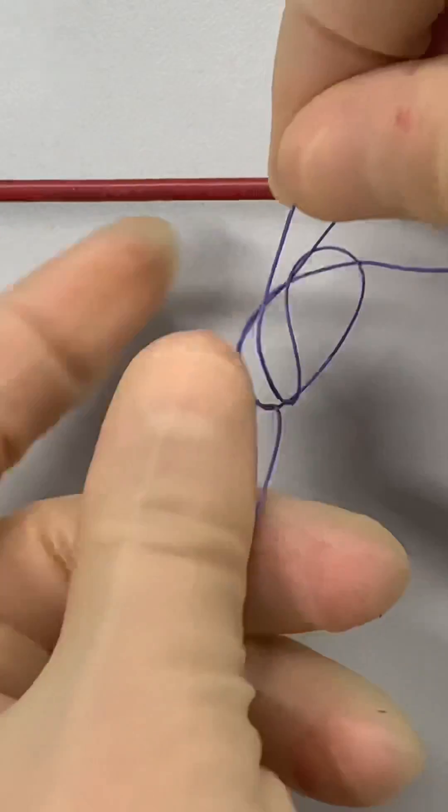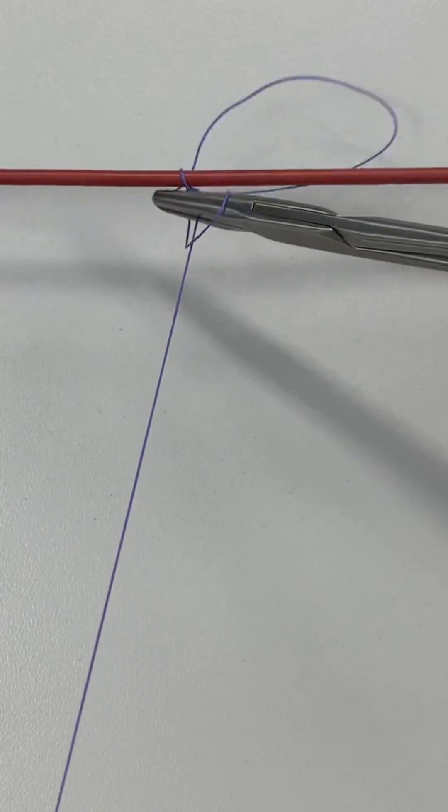If whatever is being tied off is deep in the body, needle holders slide it down to where it needs to go.